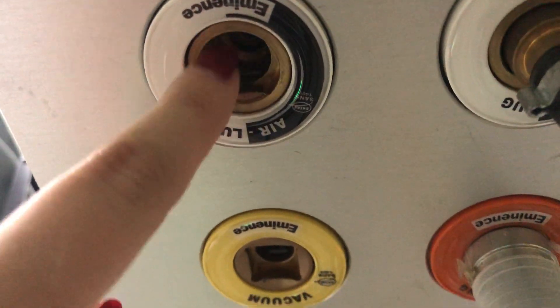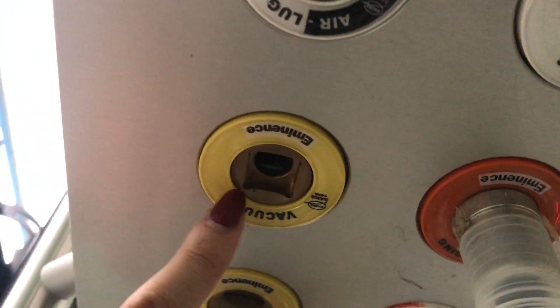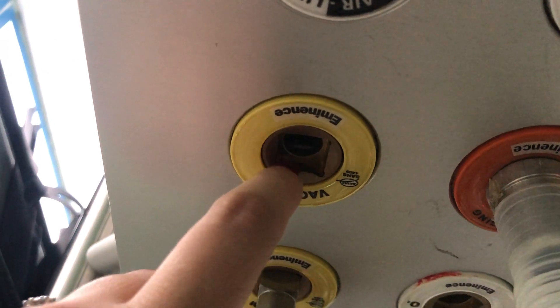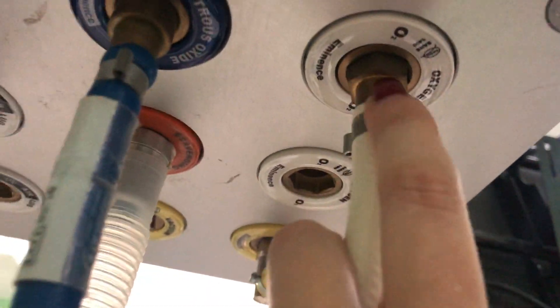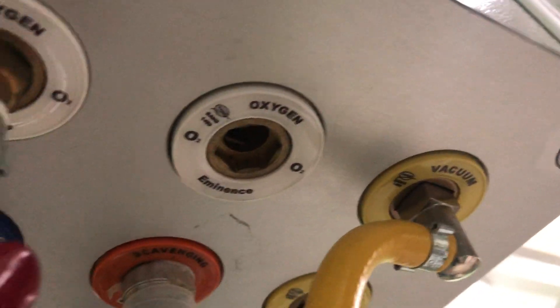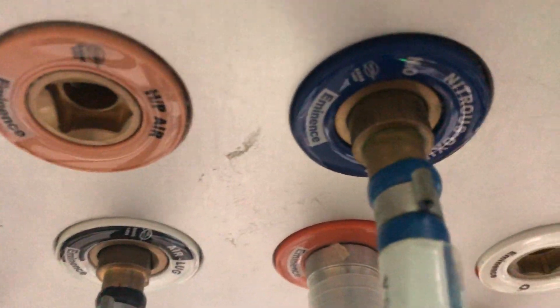Vacuum or suction is in yellow and the diameter index is a square. Oxygen is white and has a hexagon-shaped connection, which you can see more clearly in the open oxygen port. Nitrous oxide is blue and the connection is a circle.